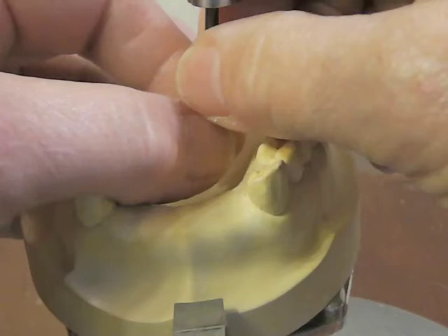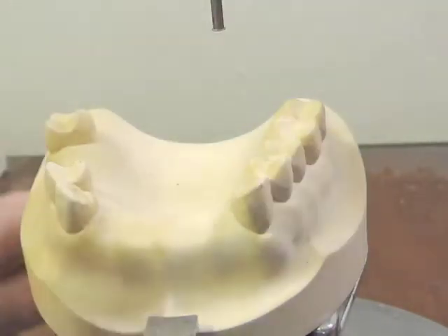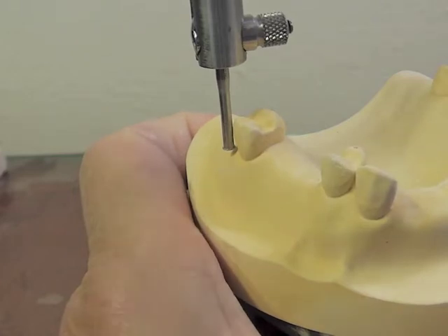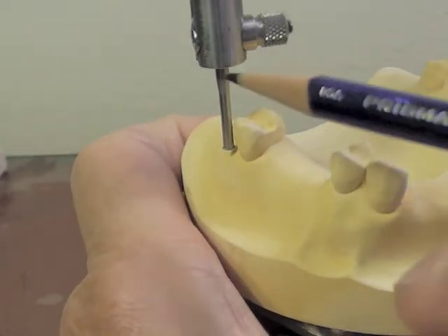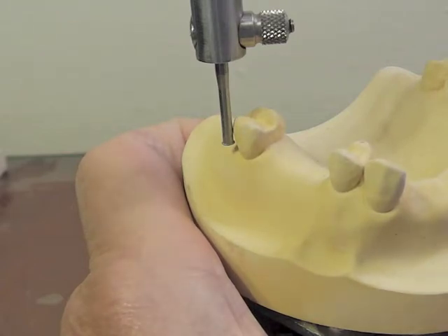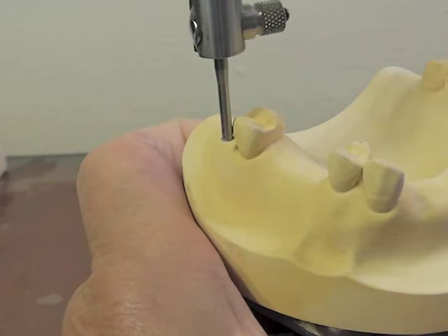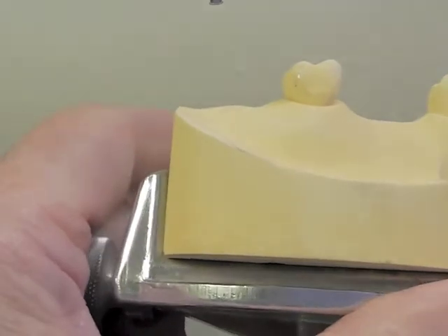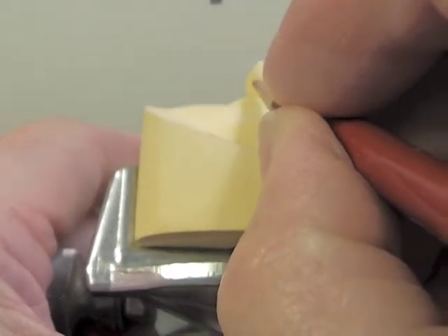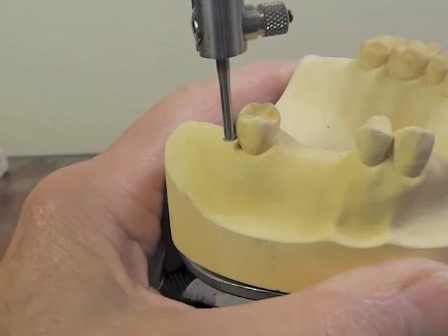Let's go ahead and measure and make sure that we have .01 undercuts. We're going to put a .01 undercut gauge in the surveyor and come back here. I start out placing my undercut gauge right about at the gingival level. I place the vertical rod of my tool next to the tooth, and then I pull up and let the little lip on the bottom of the undercut gauge touch the tooth. That is the .01 undercut on that tooth right there, and I'm going to make a little nick on my tooth and mark that .01 undercut with my red pencil.